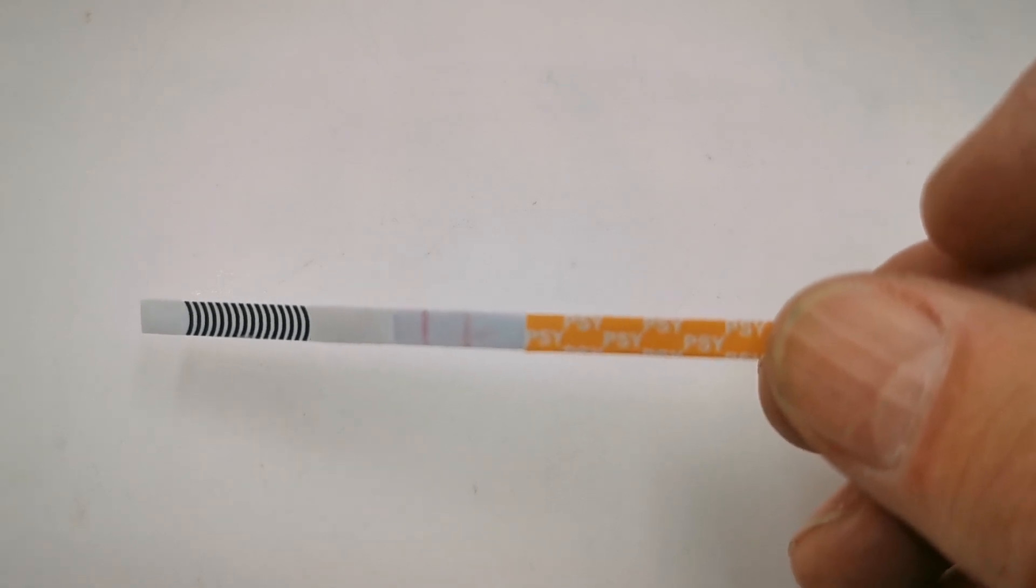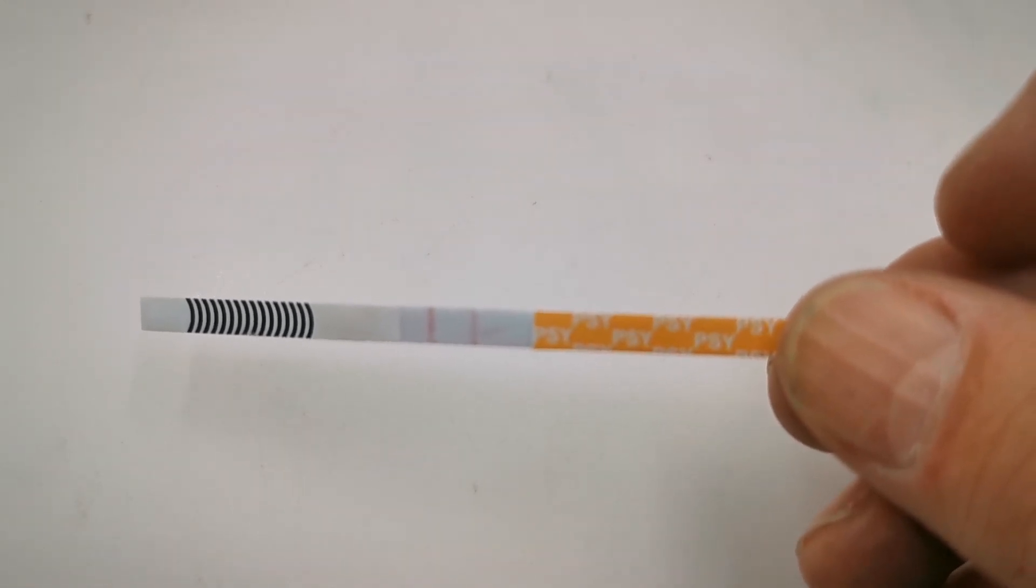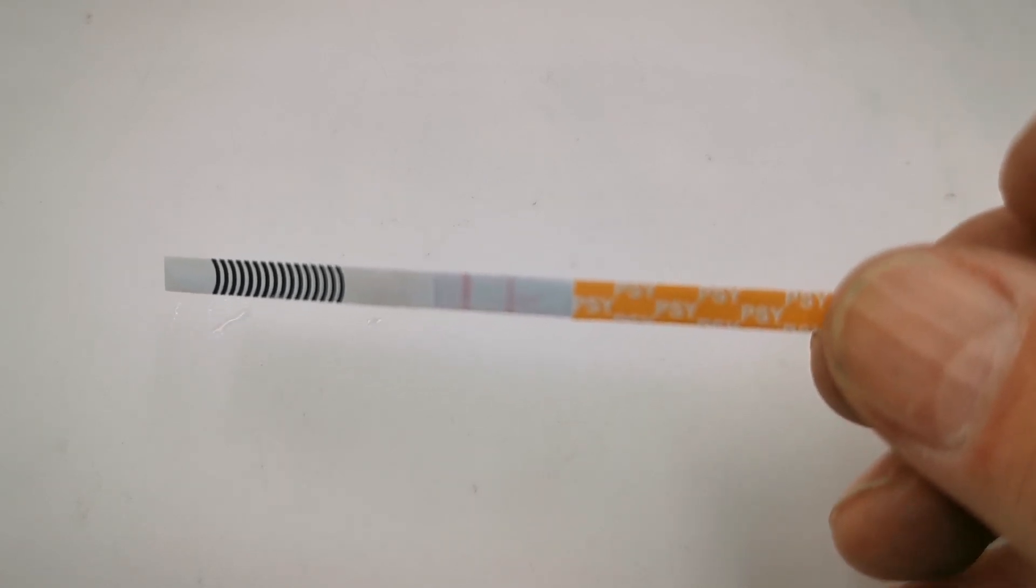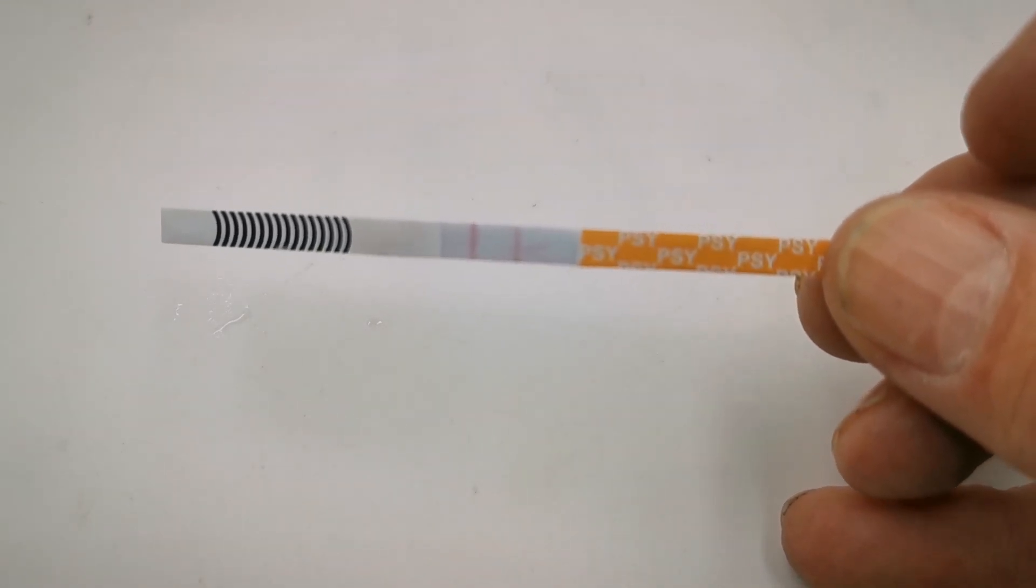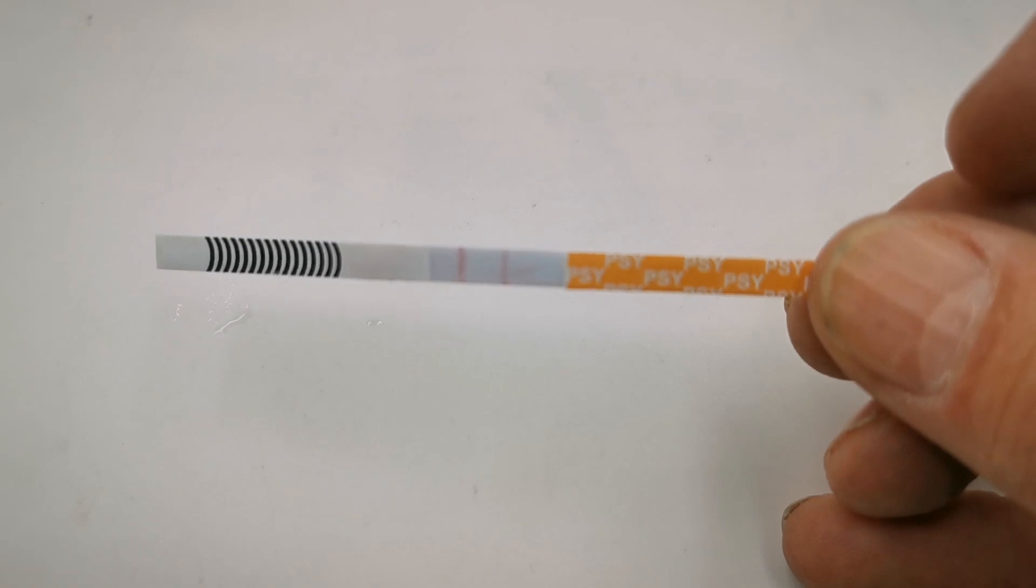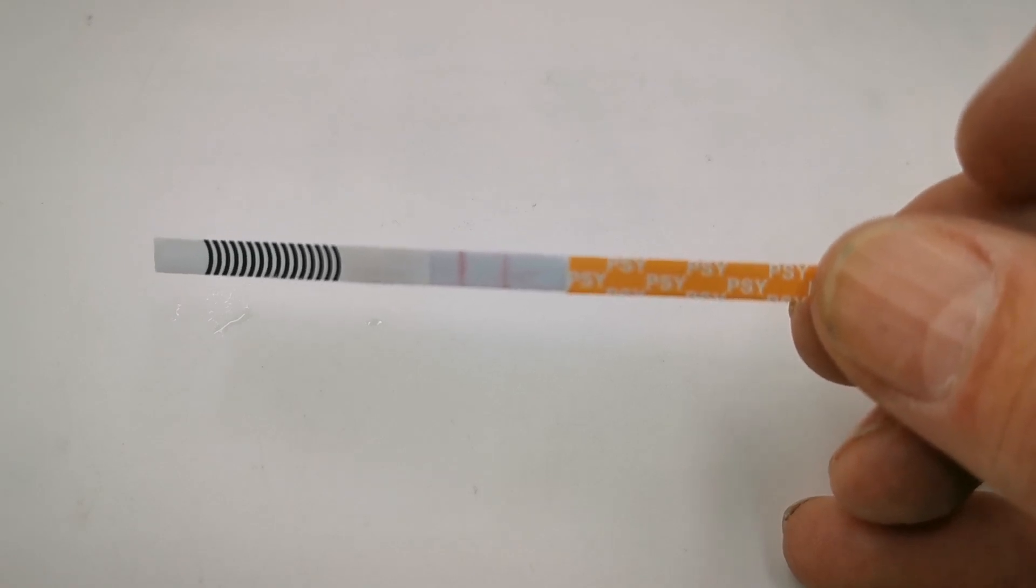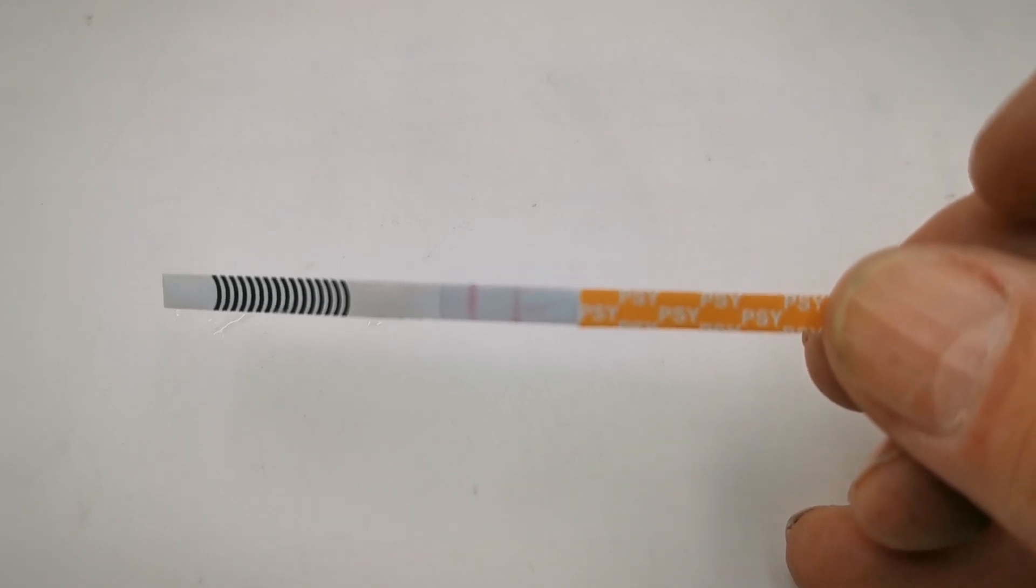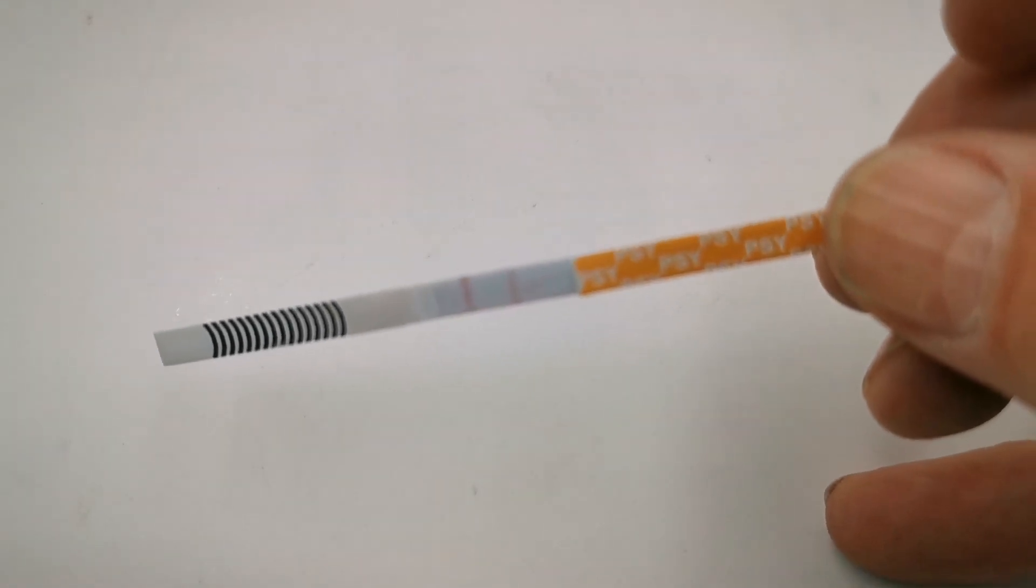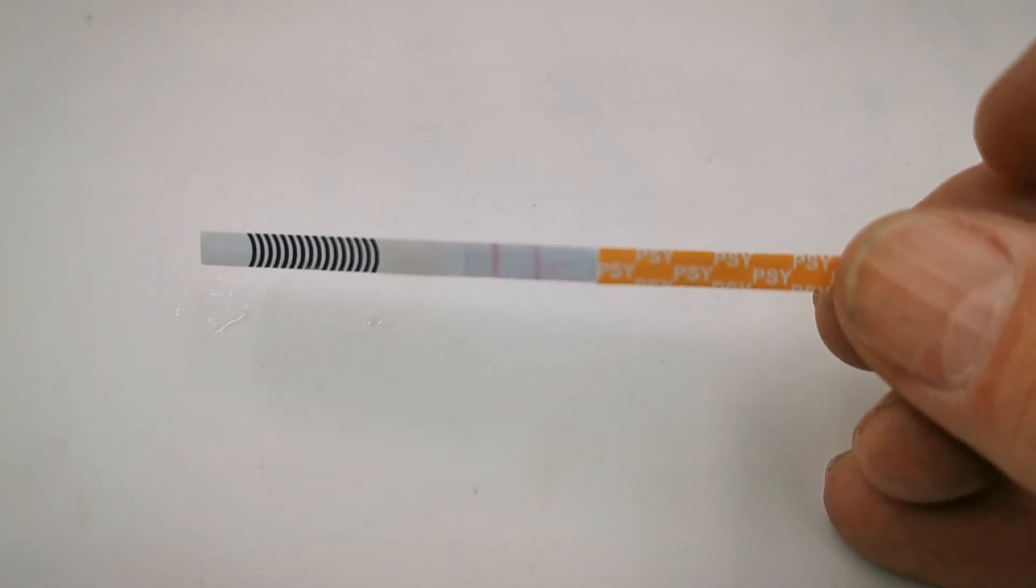The bands will form very slowly with these test results. You do need to give these particular tests a full 8 maximum 10 minutes to interpret your test results and some pink dye forming on the actual test area or result window shouldn't worry you either. As long as you've got a clear control and test line that's absolutely normal and a characteristic of these test results.